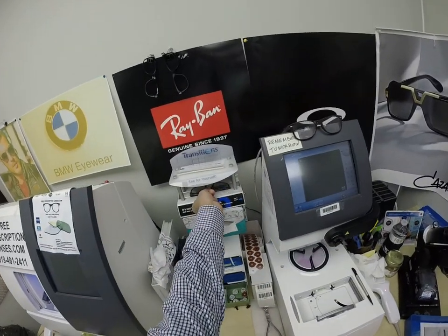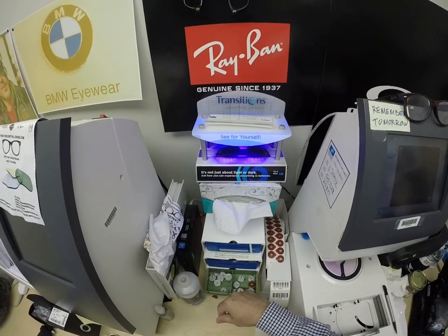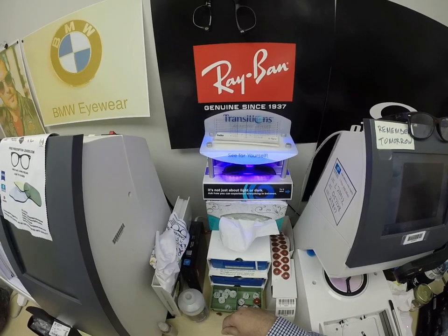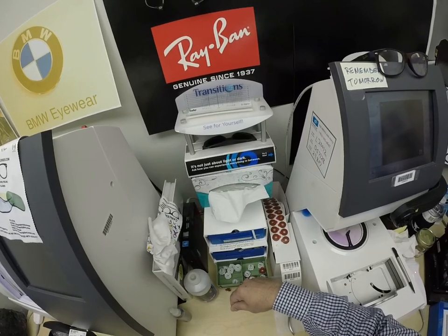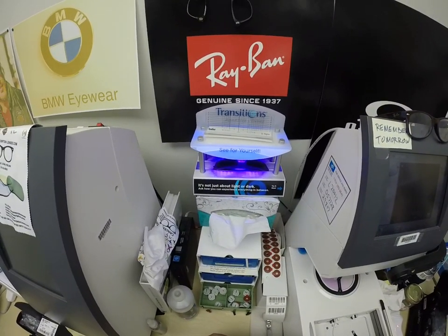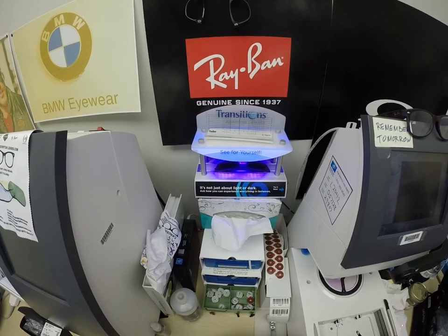Now let me go ahead and expose them to a strong burst of ultraviolet light. As you can see, it takes about 30 to 45 seconds for the lenses to darken, a little bit longer when you come back inside — 45 seconds to a minute, minute 15. Now this is important, Cornell and everyone, pay attention: all photochromic lenses will get dark on day one and continue to darken every day for the first couple of weeks of exposure to the sun. After that, they'll work for years at maximum performance. The only time they don't work 100% is if you're behind the windshield of a car — your windshield absorbs the sun's harmful ultraviolet rays, which would cause your dashboard to crack from sitting in the sun all day, and that's why they don't turn dark in a car.